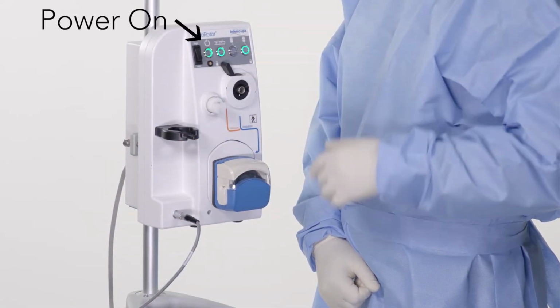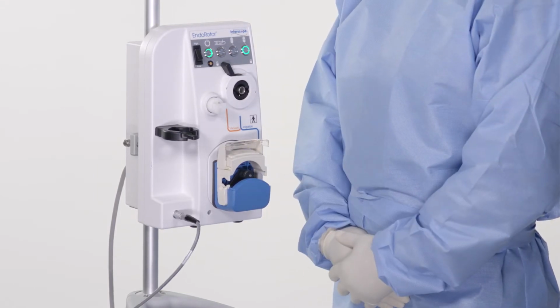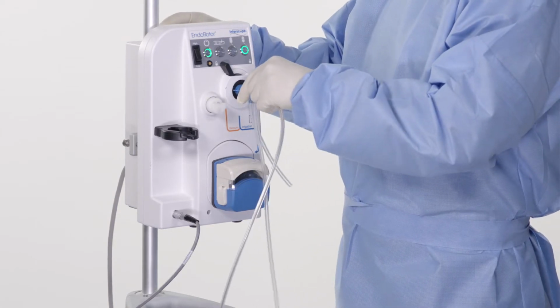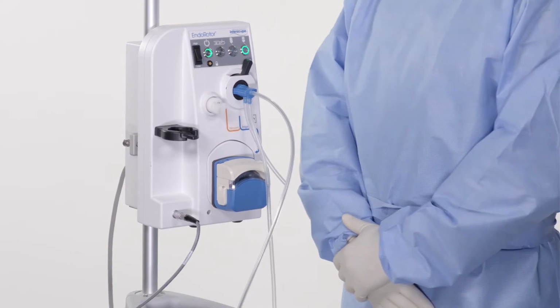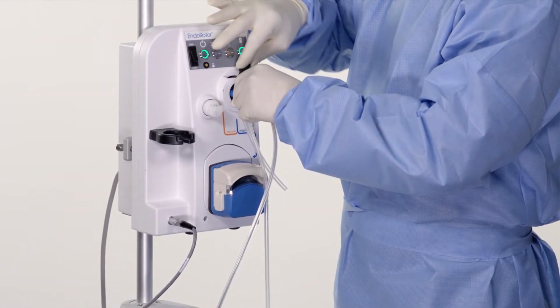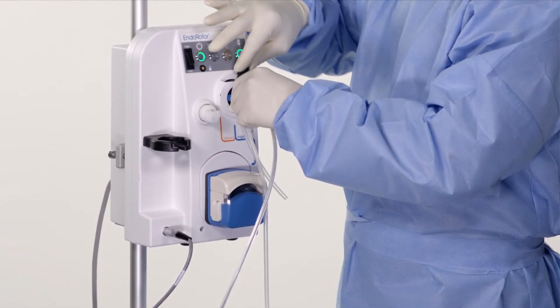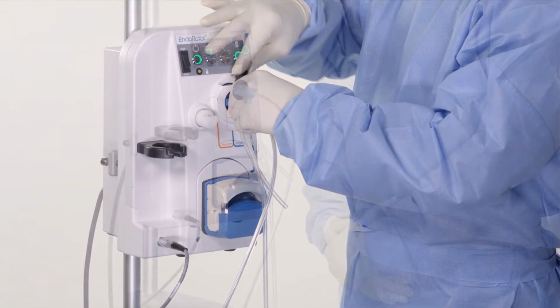Power on. Ensure the catheter interface on the console is in the unlocked position. Insert the catheter's proximal housing into connection. Do not twist. Ensure hex connection aligns. Gently push the catheter's housing completely inward and rotate locking lever right into lock position. Maintain forward pressure when inserting the catheter.